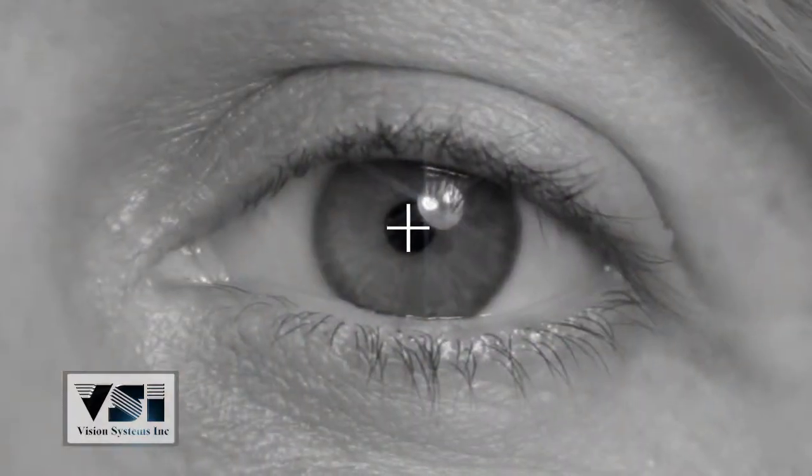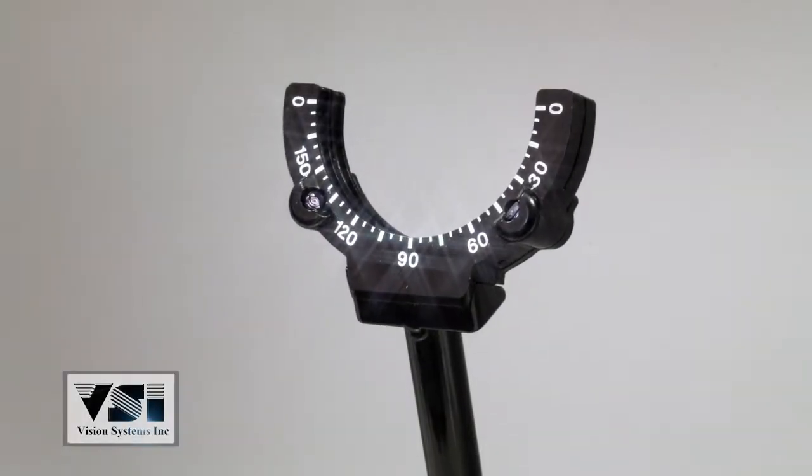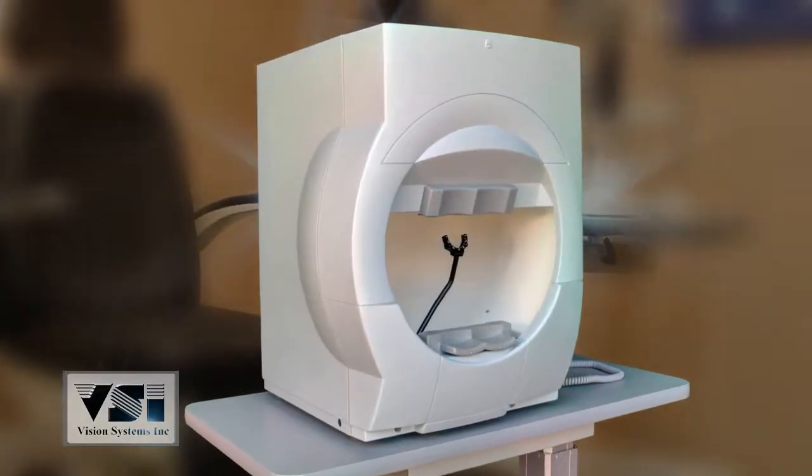Some of the great features of the 740 include a video eye monitor, trial lens holder, and gaze tracking ensuring precise results.